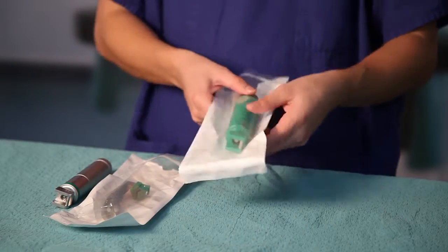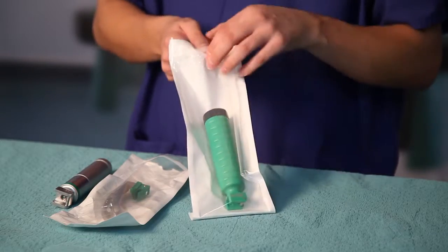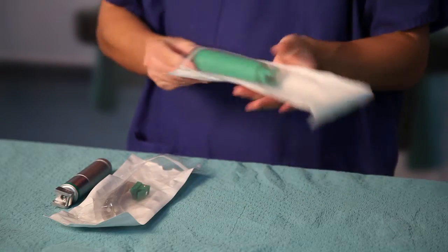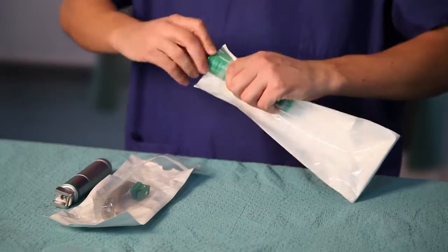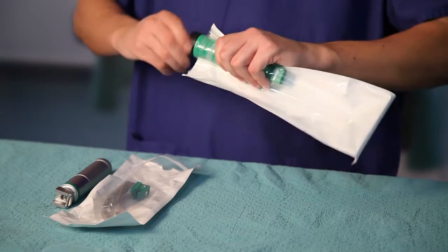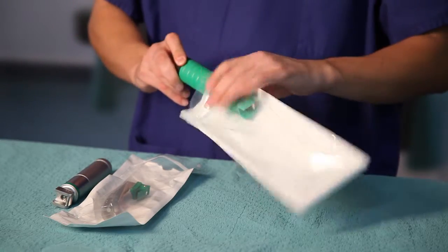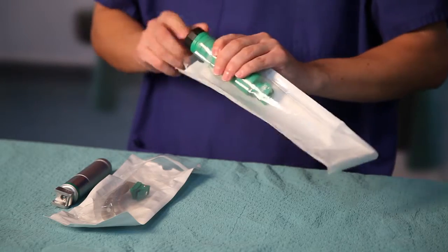The Callisto LED handle is very much the same. You open at one end and the screw bottom is always at this end. This allows you to insert batteries and take them out without touching the collar or any part of the handle except for the base.